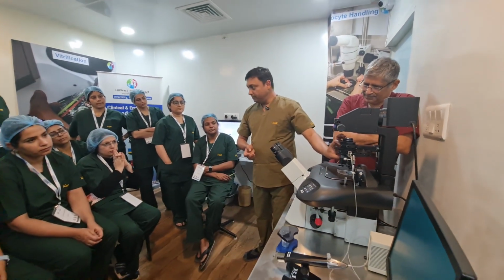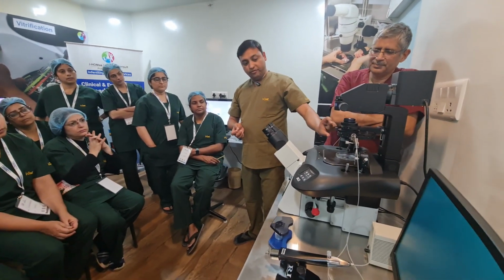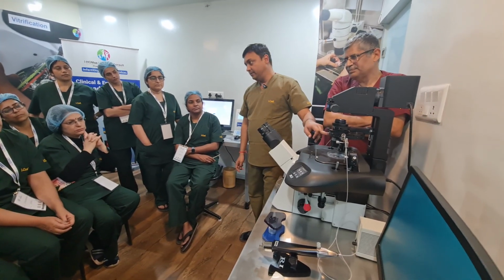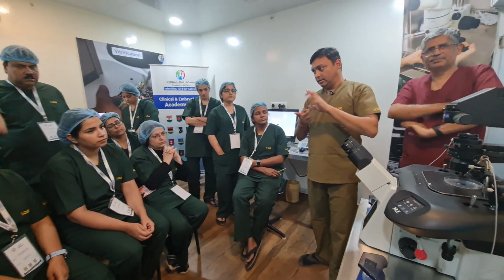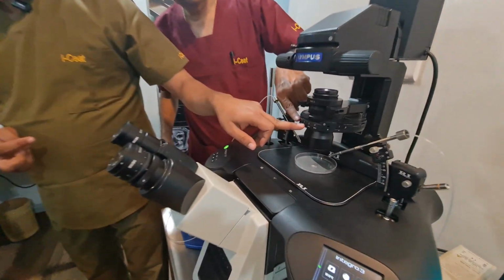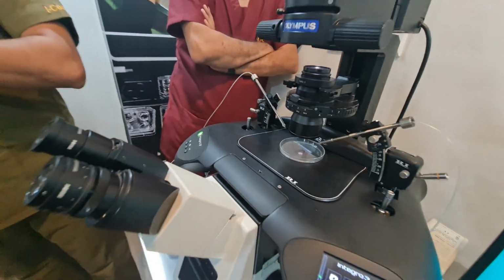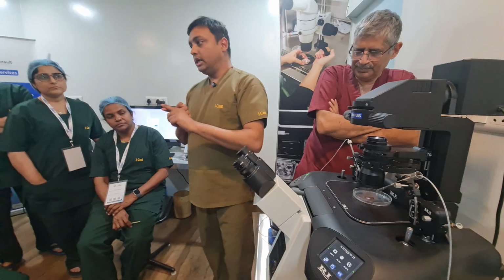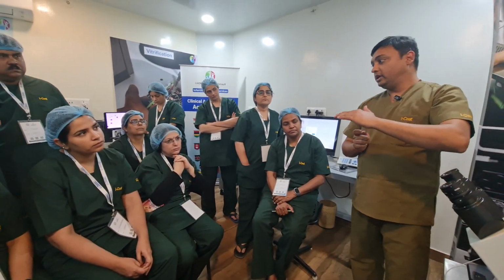This is called the condenser. This is the main part of the microscope. From there, every light setting is there. This one is called bright field. In every microscope there is one bright field, then RC filters. So there are filters in it: bright field, then RC1, RC2 and RC3. RC1 is used for 10x, RC2 is for 20x and RC3 is for 40x. That is called relief contrast. These are the contrast filters that set your image quality.